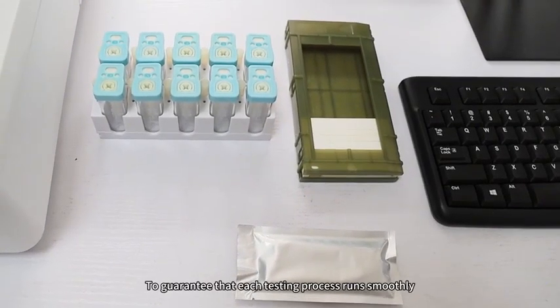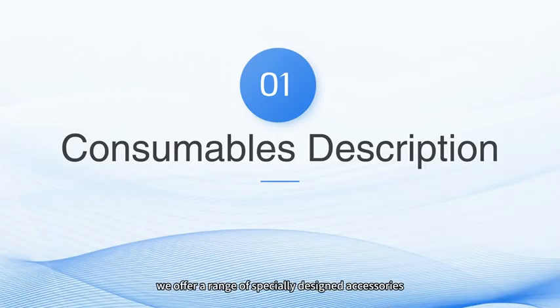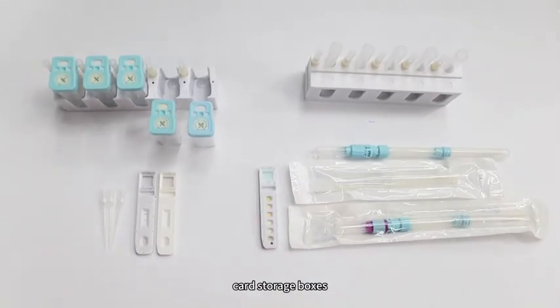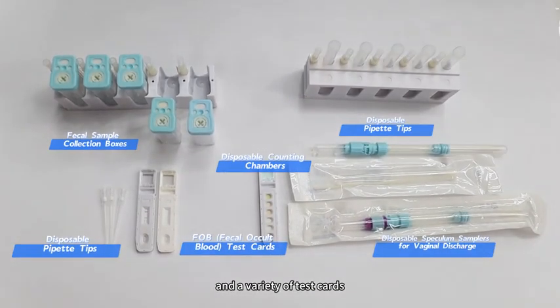To guarantee that each testing process runs smoothly, we offer a range of specially designed accessories. These include dedicated specimen racks, card storage boxes, and a variety of test cards.